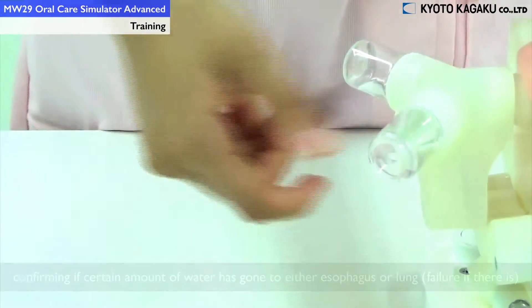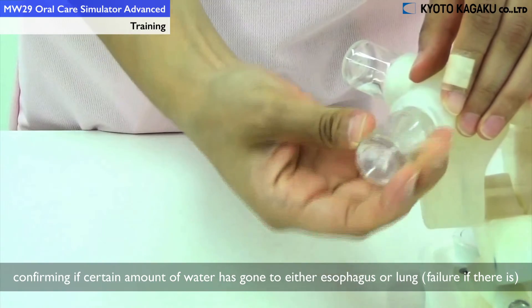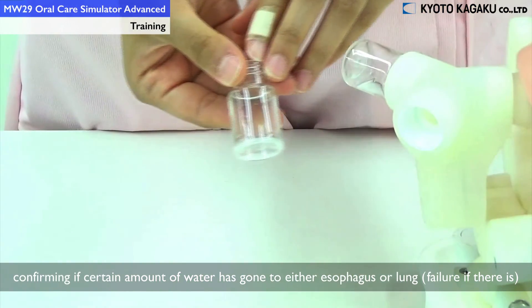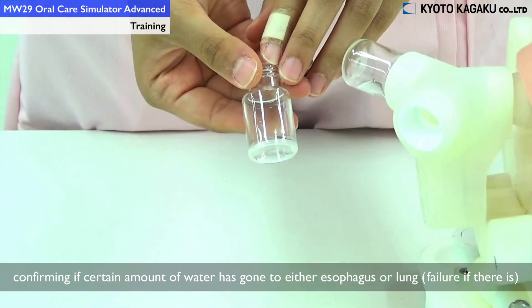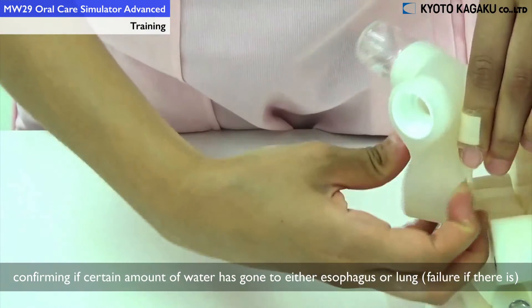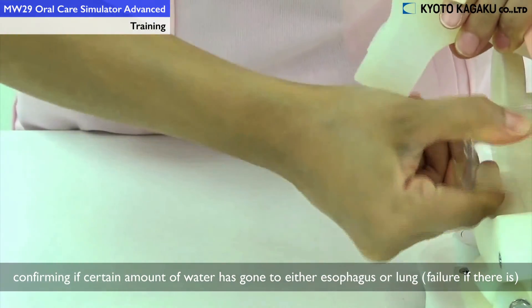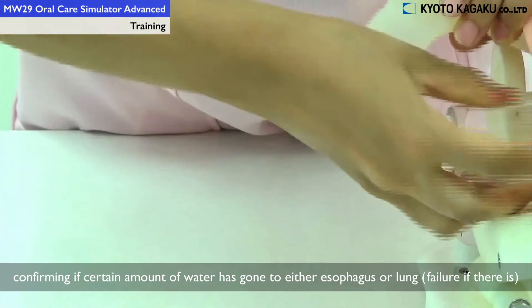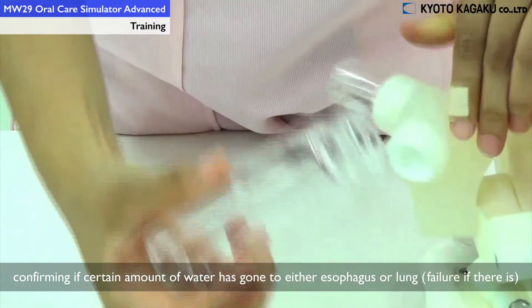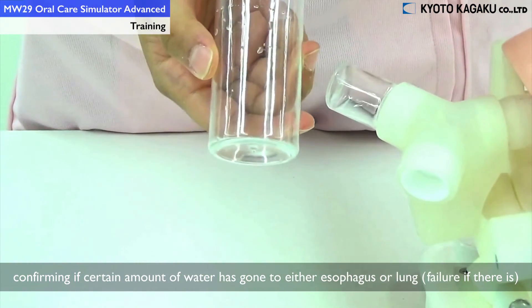Now you can check whether there is any water left in the airway and in the stomach.